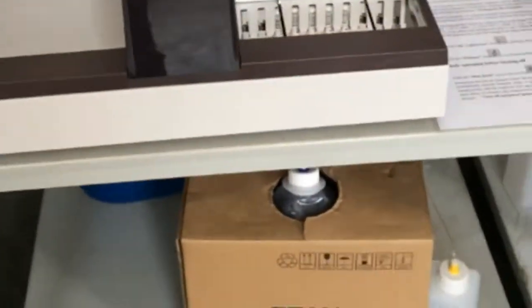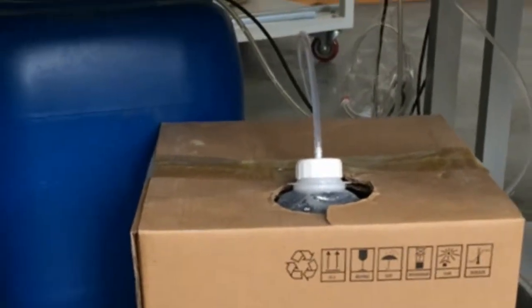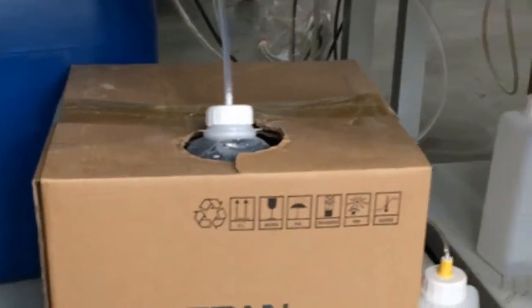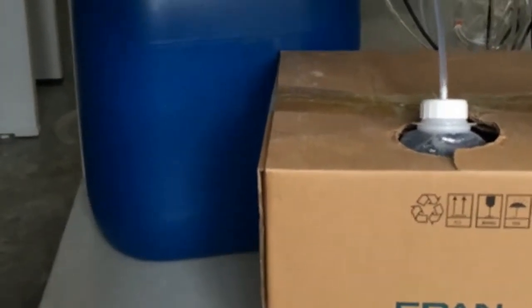Before we switch on the analyzer, we need to manually check if we have enough volume for diluent and also the lyse, and also for the empty bottle, if the space is still enough or not.